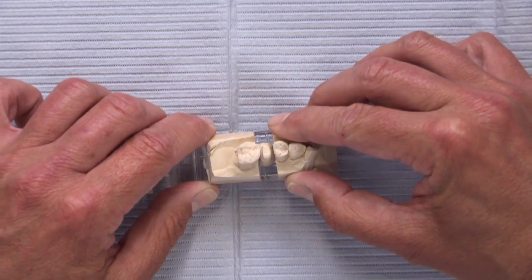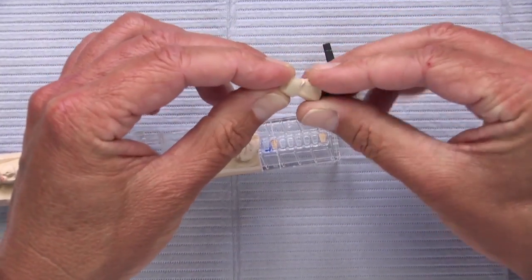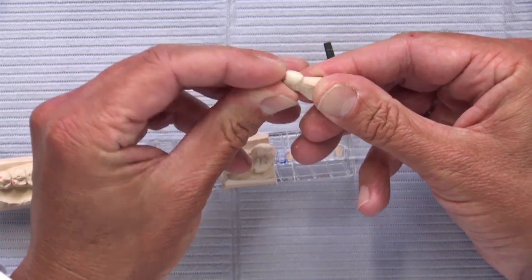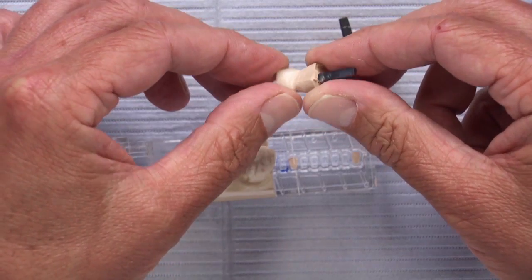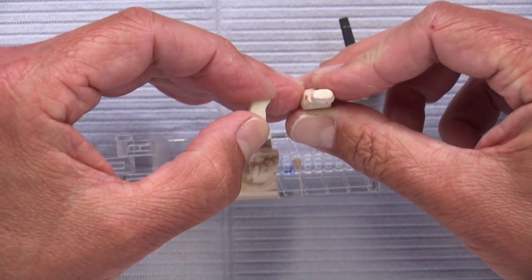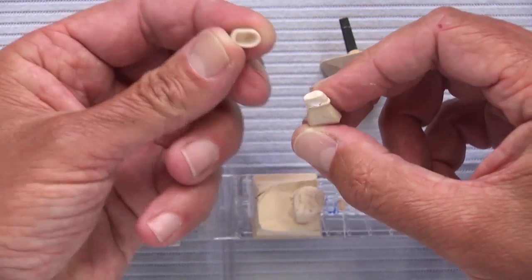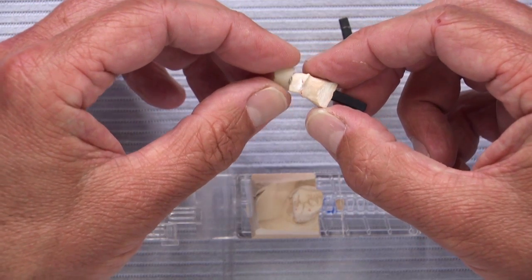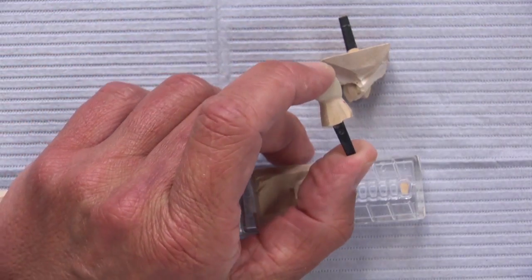At around 150 microns we aren't able to do what we'd like to do. Part of this depends on the adjacent teeth — if they weren't there, the milled Bruxer crown would fit on the preparation relatively nicely. But with adjacent teeth present, the crown won't go down because of the undercuts. The bigger the undercut gets, even though we can mill it into the crown, the crown will not fit down onto the tooth, so some adjustment has to be made to the inside of the crown.